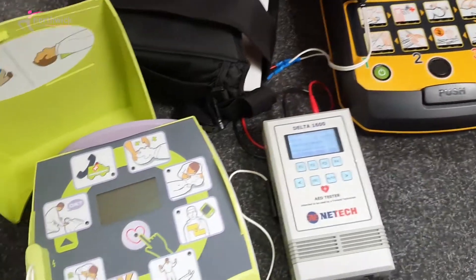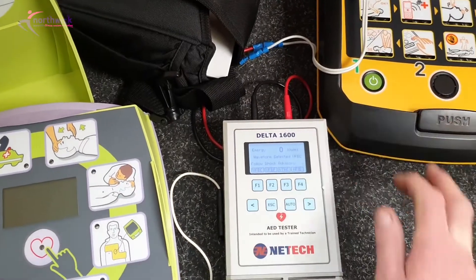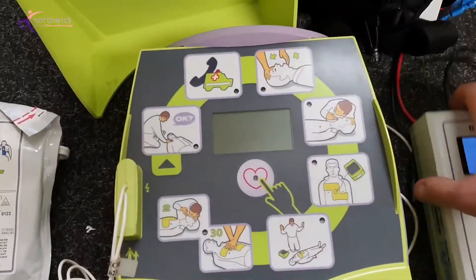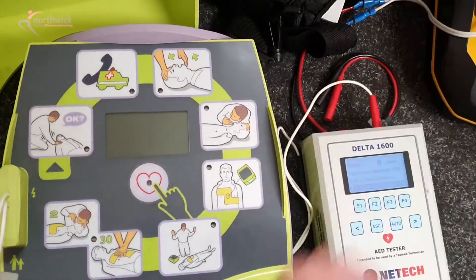Just to clarify, I've got another working device here. I'll turn that off so I can be clear — from a technical point of view, this device here I will connect to the analyzer so you can see that the test equipment itself does work correctly.